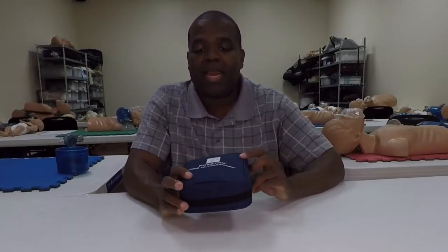Thanks for joining me again today. We're going to do another product review, and I'm pumped — anybody who knows me knows I love AEDs, gadgets, training materials — flashy lights, all that type of stuff. I'm flat-out in love with that. What we're going to be checking out today is the Prestan AED Ultra Trainer.